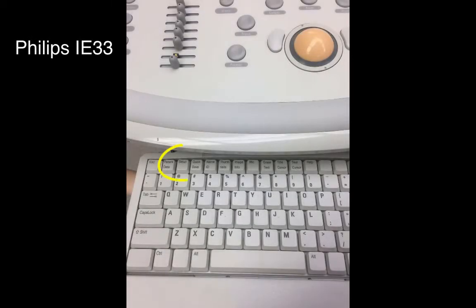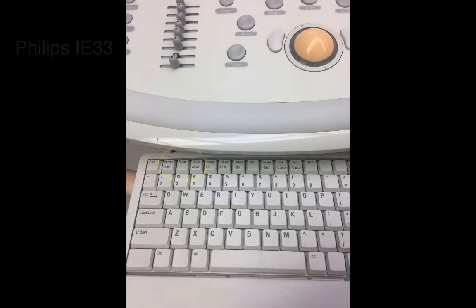The following section will describe how to extract raw 3D data out of QLab. The first step is to ensure that raw 3D data is set to be exported on your machine. On the Philips iE33 machine keyboard, press the Setup button on the top row.